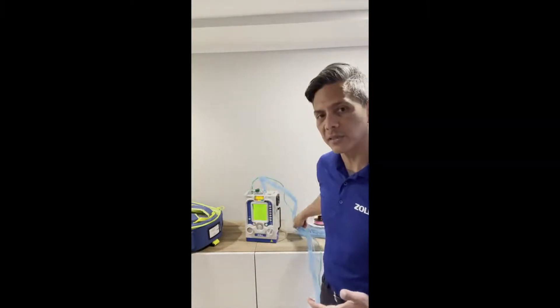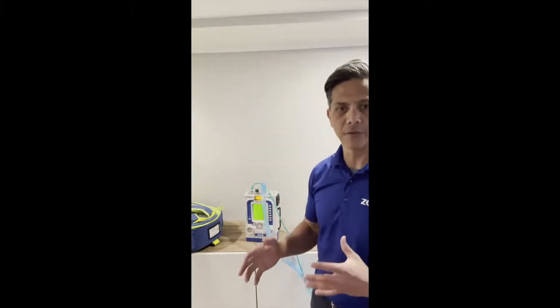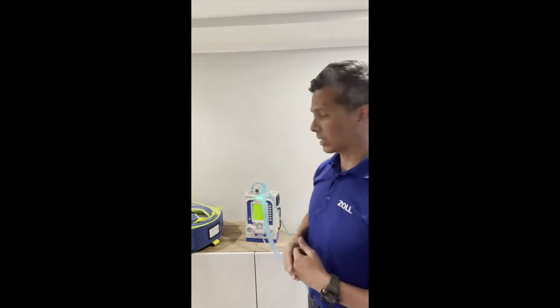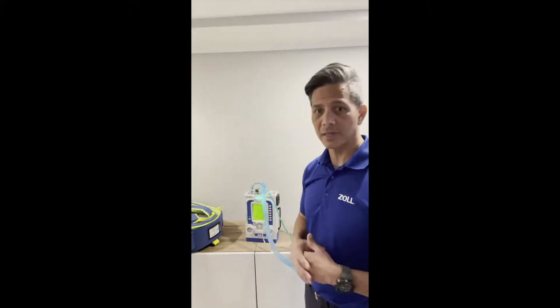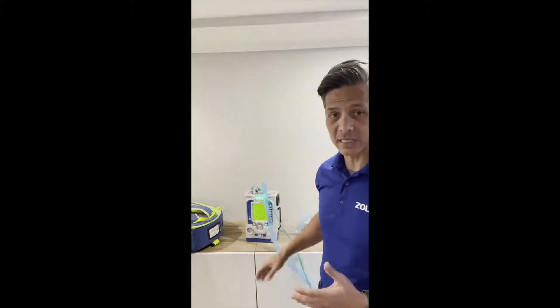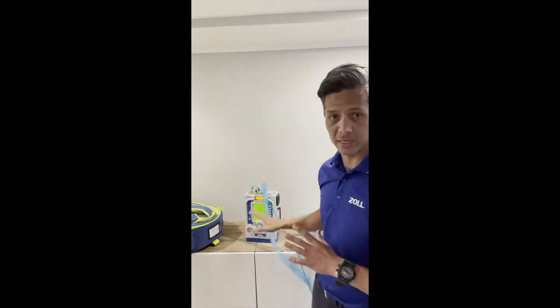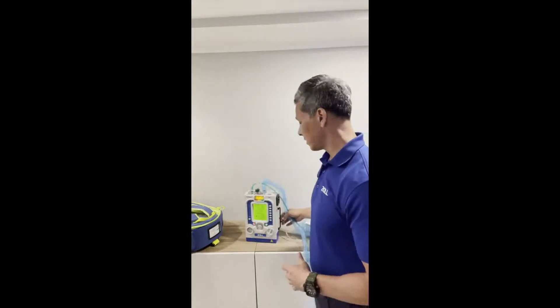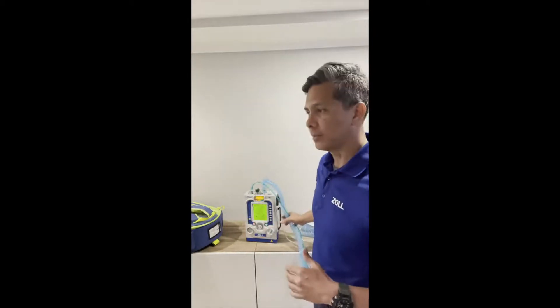You can see how fast that boot-up was — less than three seconds. When I turned it on, it did a full calibration test, checked if the compressor was good, and identified any failures. It quickly does a self-test. Other ventilators are not able to do that, and other ventilators don't have a single integrated battery — no separate battery charger or external system needed. What you see here is what you get.